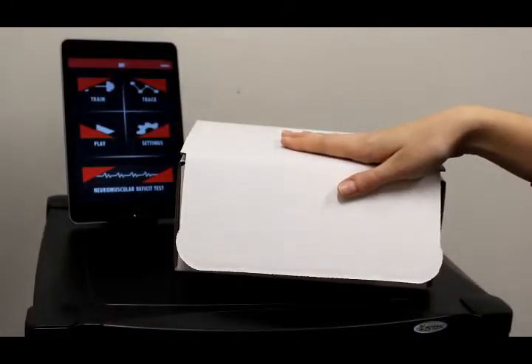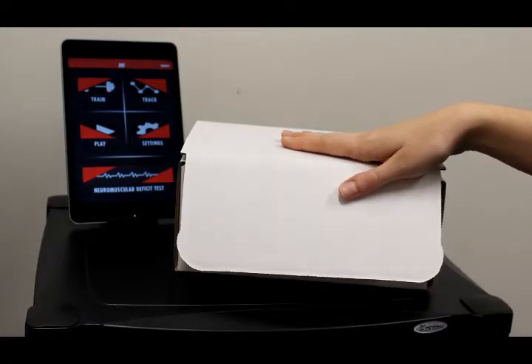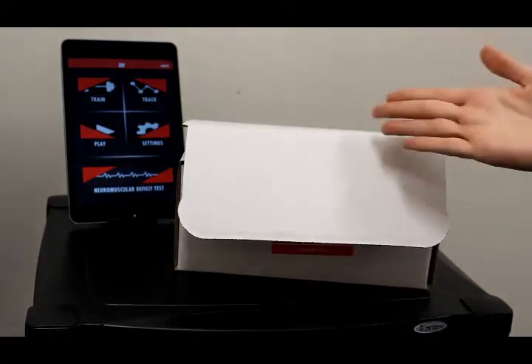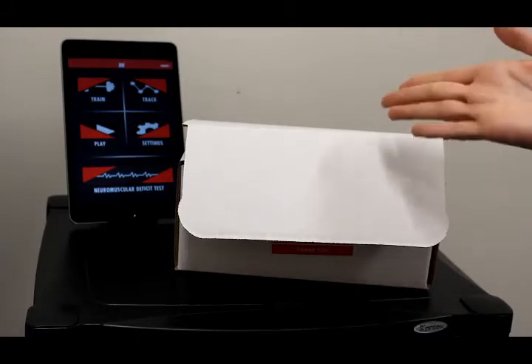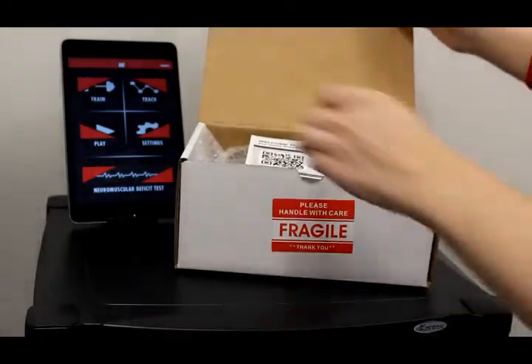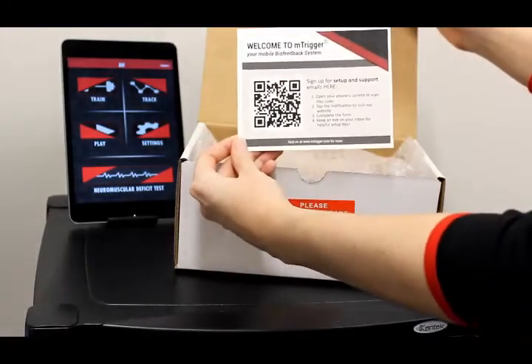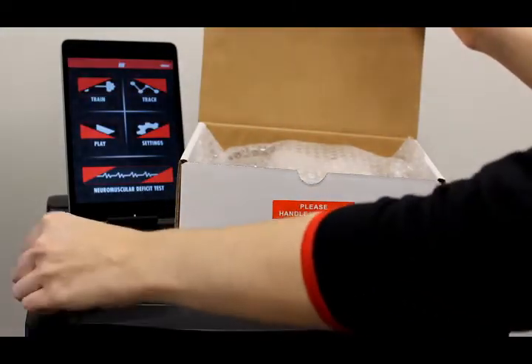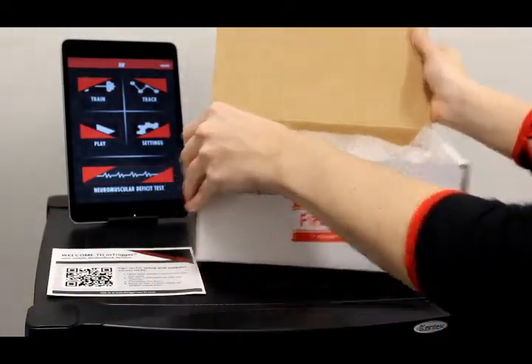So this is what you'll receive in a typical mTrigger shipment, and this is an individual unit, which is our standard kit. Our clinical bundle has all the same items, just in larger quantities, and you can check that information out on our purchase page. You'll see here that you're going to start off with your welcome insert, and that's likely how you wound up here, so welcome. And now I'm going to get into what's in the rest of the box.